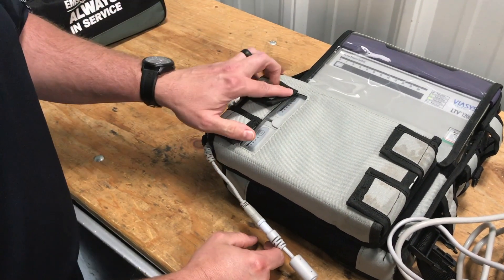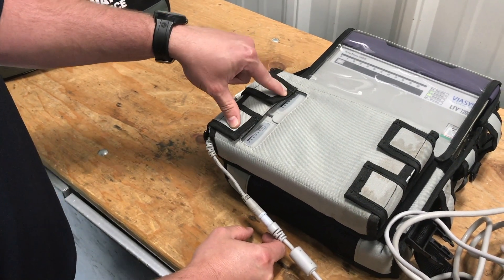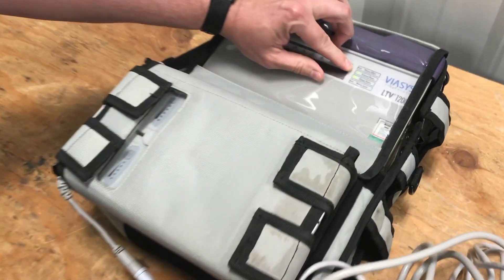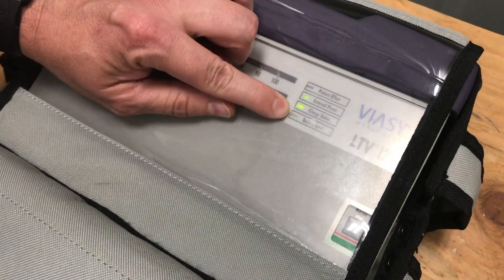That's all there is to it — we leave it on there. The batteries will light up and the charge indicator will get greater as we reach full charge. When everything is full, you'll see this light up here: it'll say 'external power' and everything will be green.